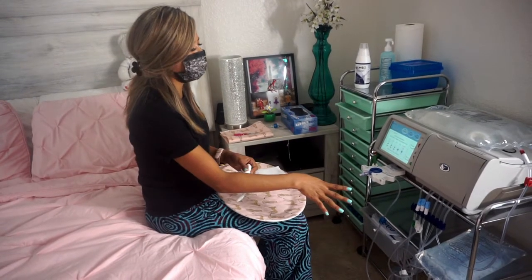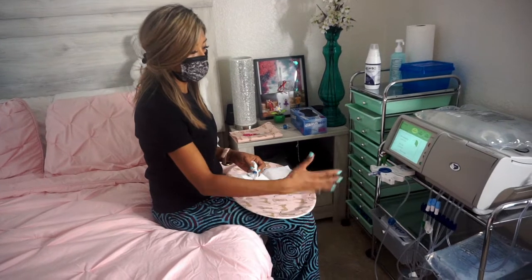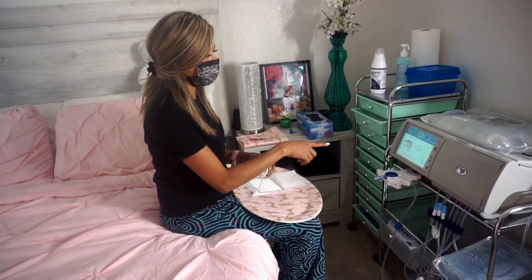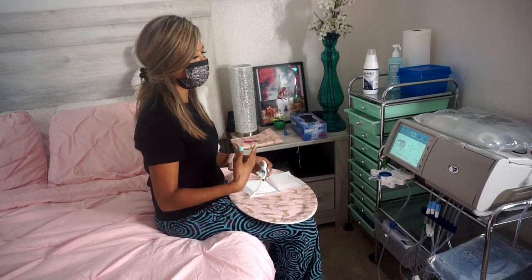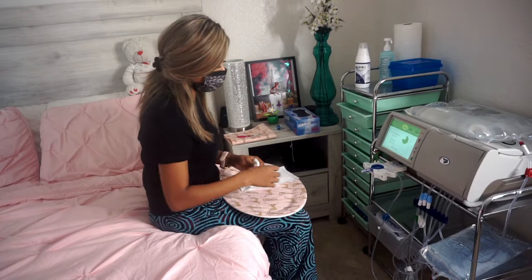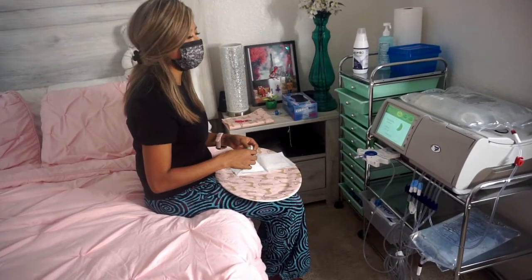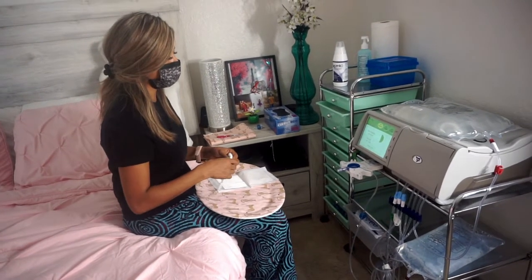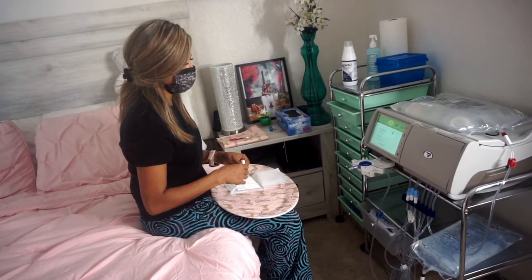It's just telling me that the bags are connected and it has recognized my two bags, so it's all good to go — press next. Right now it's flushing, making sure the lines don't have any air. Now it's going to the priming step. This is a very important step because if the lines don't get primed correctly, we get air in the line, which causes crazy shoulder pain — I had a solution for that and I will be posting a video about it. Usually you'll be able to see when the water goes through all the lines all the way to the top. If you can't see that, you can always prime it again. I saw it coming all the way over here, so I'm not going to re-prime it. That's good enough. So it says close it — I'm going to close the clamp and press okay.